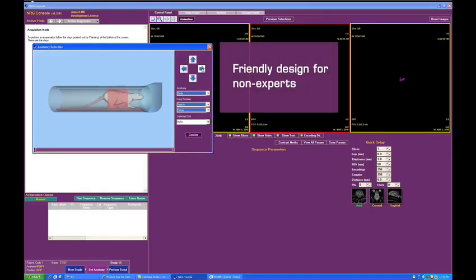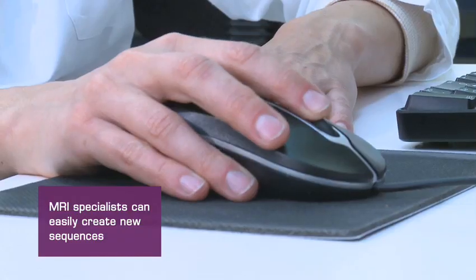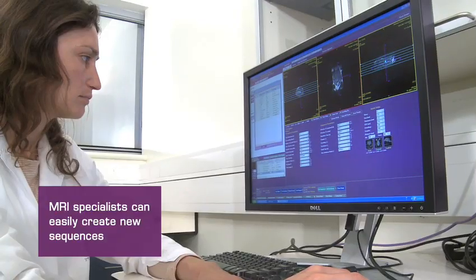The system's user-friendly design enables easy operation even for non-experts, while allowing MRI specialists to quickly and easily create new sequences.